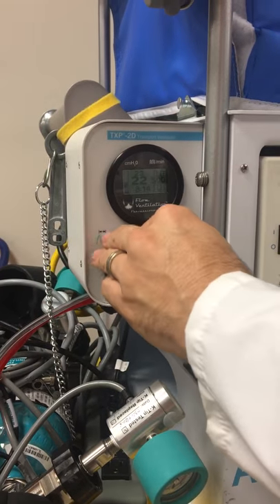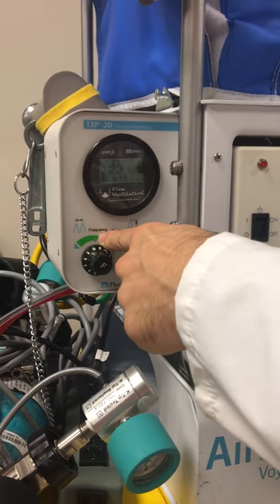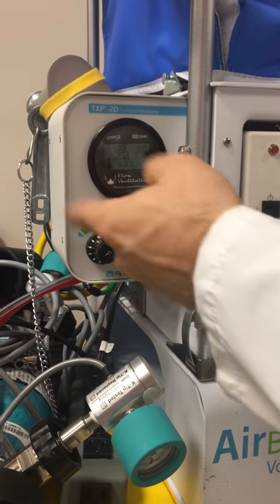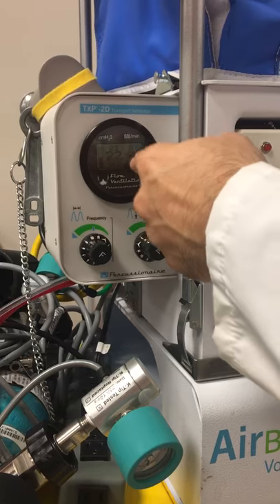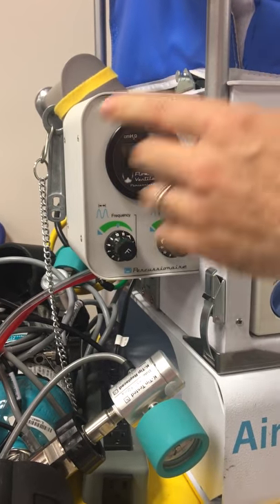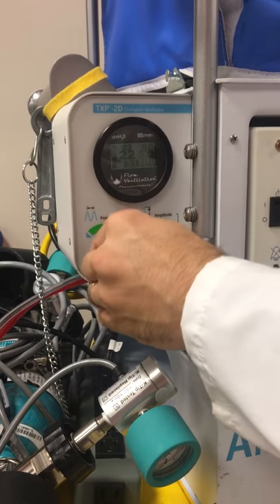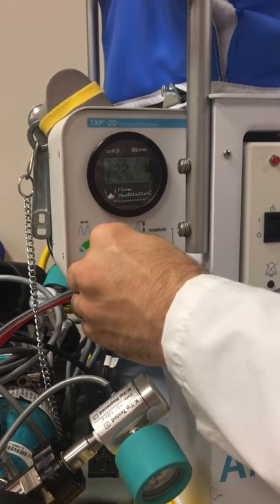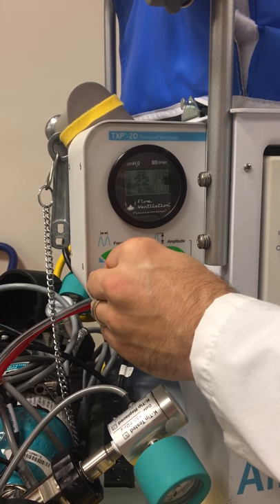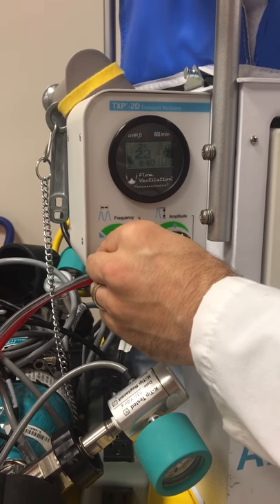Is it more a CO2 issue? You'll want lower frequencies, maybe towards 400. Or for secretion clearance, lower frequencies, more towards 400. Higher frequencies would be for oxygenation issues if we're really having trouble with oxygenation but CO2 is not our number one concern. So 500 is a decent middle point, and we could increase towards 600 or decrease towards 400 depending on our goal — oxygenation or CO2 removal.